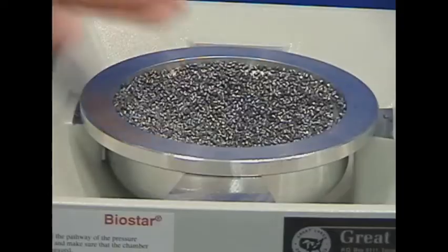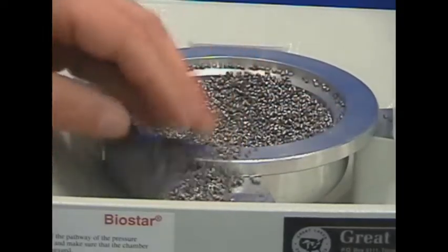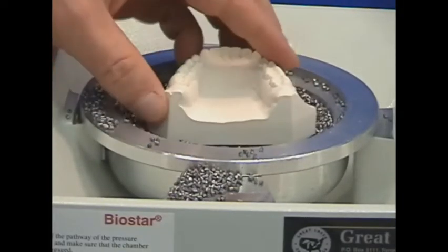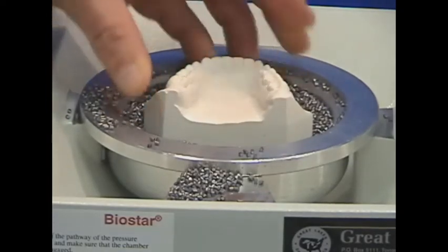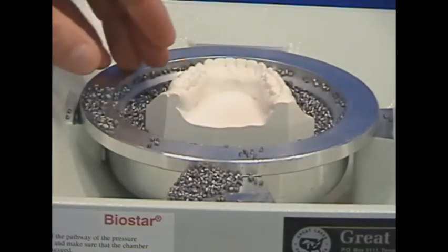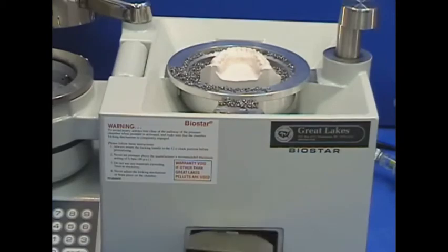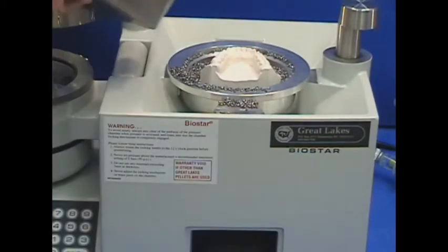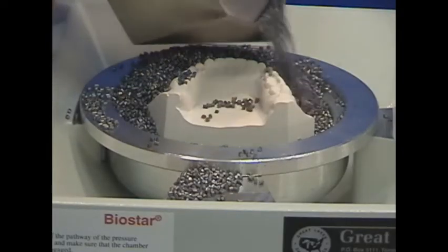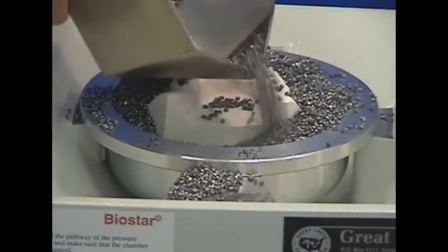The pellet level is adjusted to allow the model to be elevated above the cup's rim. A model reference 3 mm below the gingival margin should be level to the rim of the pellet cup. Pellets are poured around the model to fill gaps to the rim of the pellet cup.